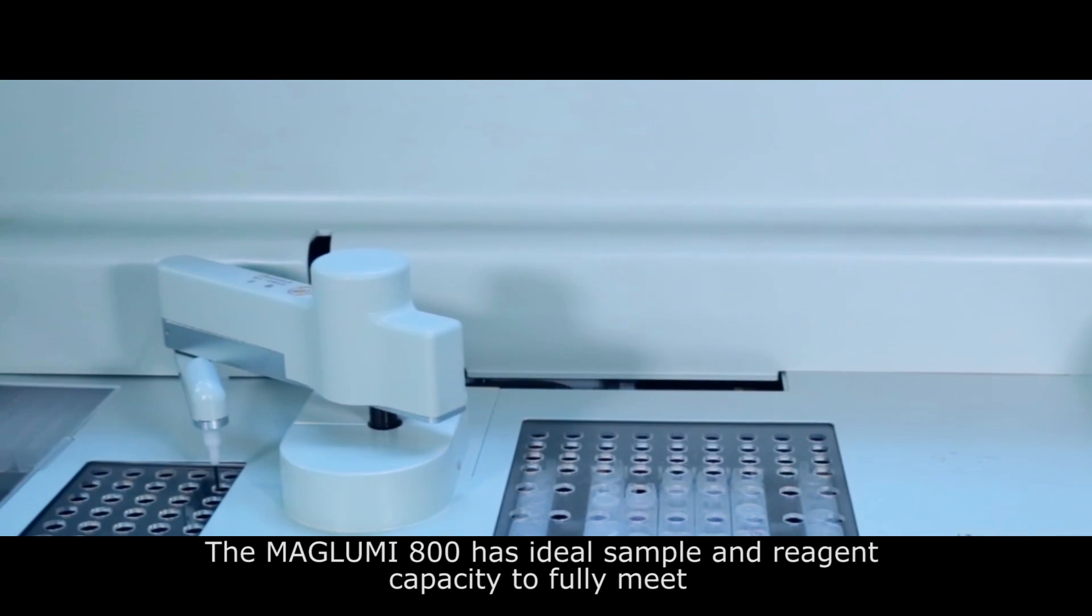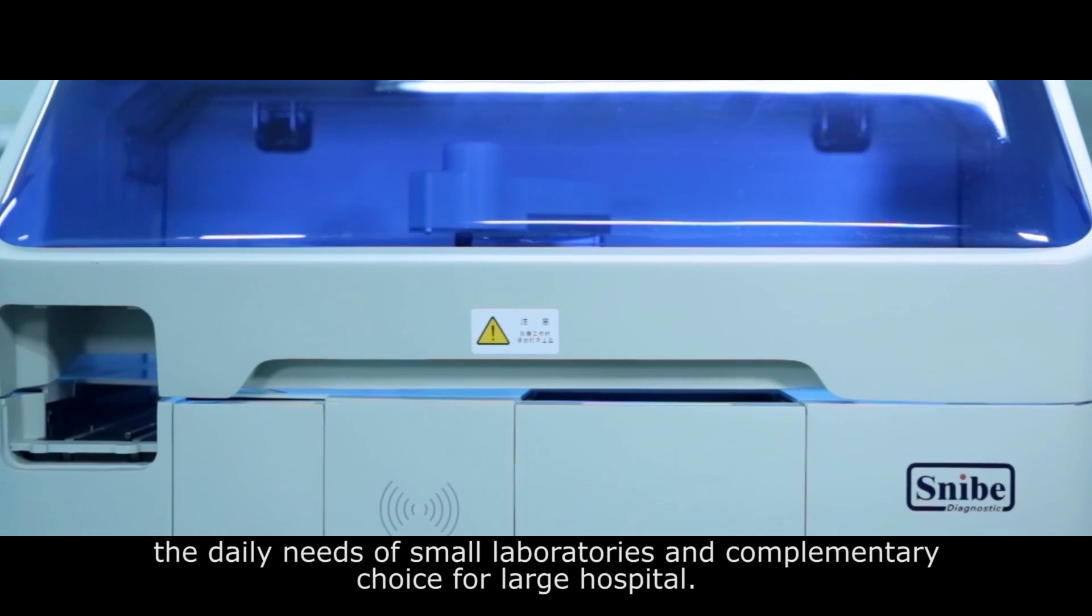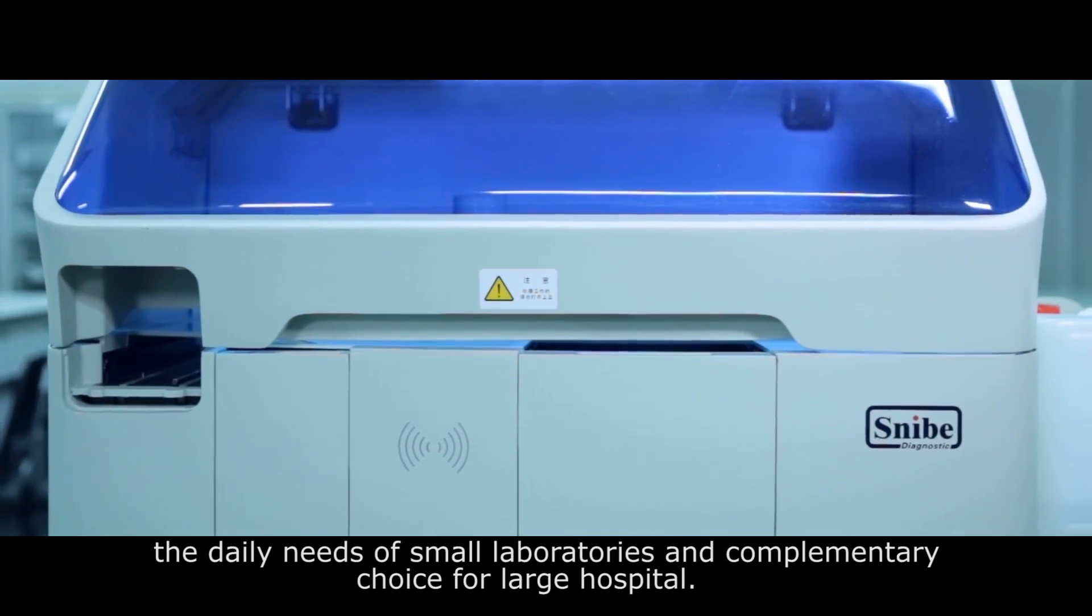The Maglumi 800 has ideal sample and reagent capacity to fully meet the daily needs of small laboratories and complementary use for large hospitals.